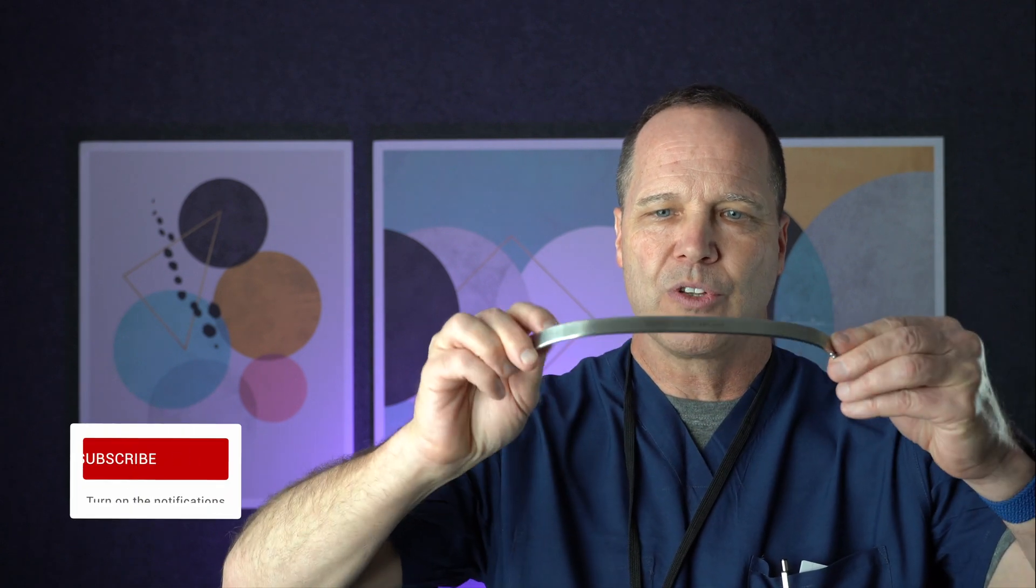Depending on the age and size will determine how long it is. But it goes in the chest behind the breastplate from here to here. It's outside from where the bar is curved, and it basically pushes up the chest behind the sternum.